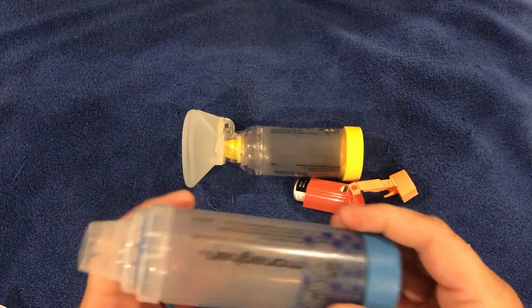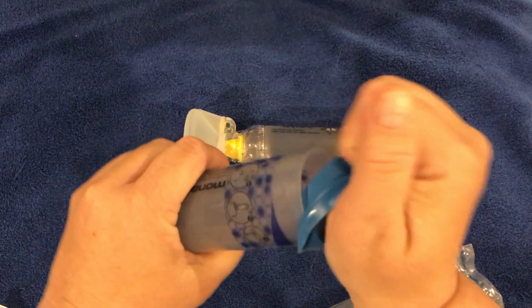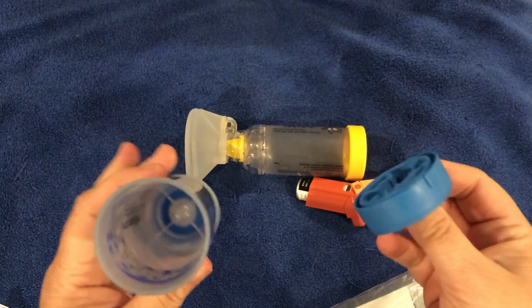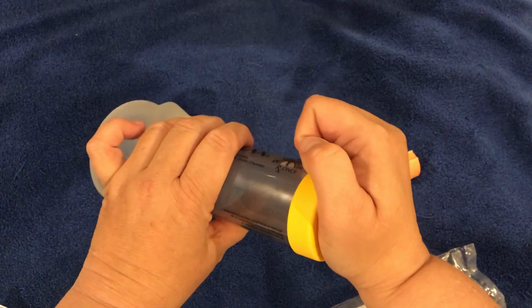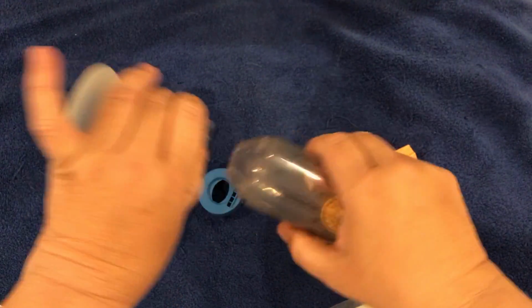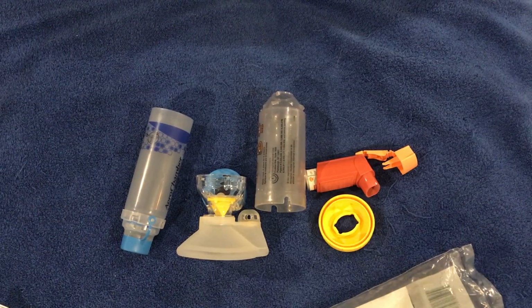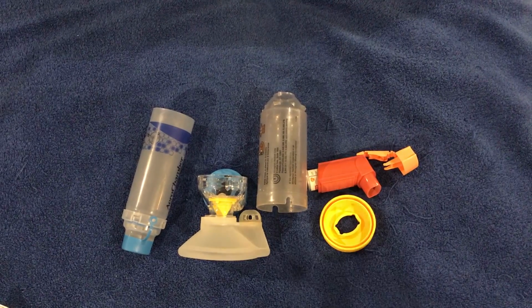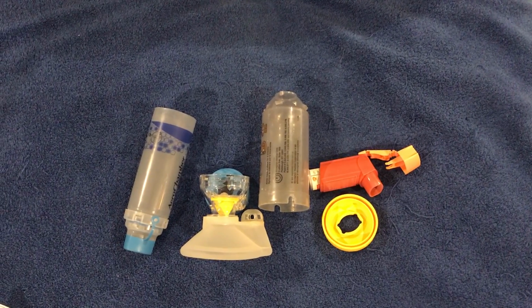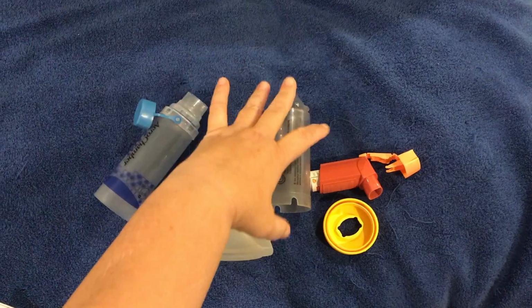After every week, he can open this one here, this one opens from here, and he will rinse the chamber in warm water. You can leave it soaking for 15 minutes. This one opens here as well. We can put everything in a small container. We wash with warm water, a little bit of soap, rinse with fresh water, and then leave it to air dry. Be sure there's no water residue inside before you repeat the procedure.